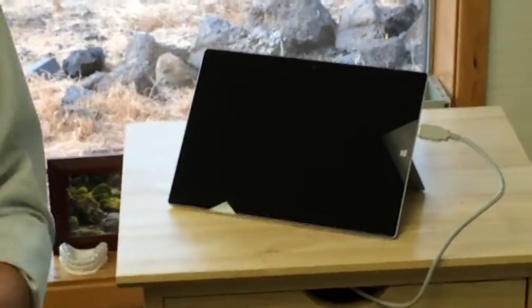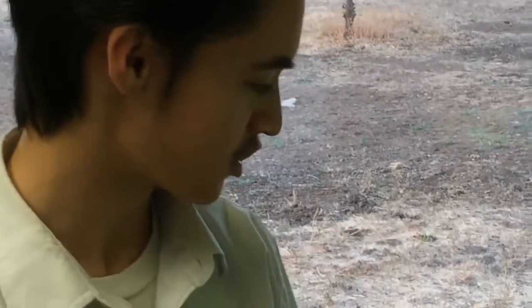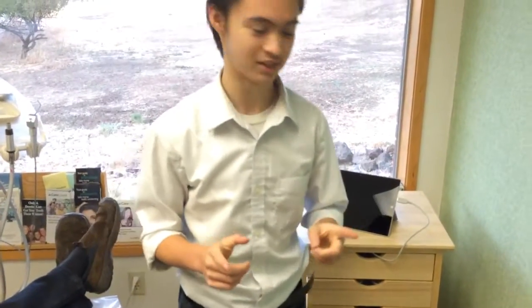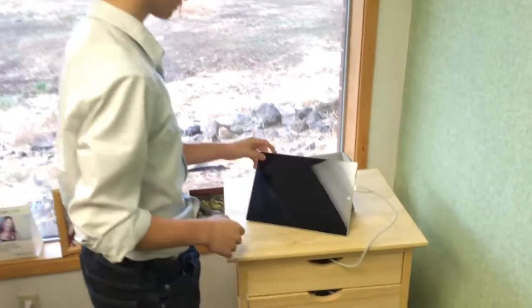This is your training video for implementing this intraoral camera along with the Microsoft Surface tablet. Just watch along. This should make things pretty easy for you. I'll show you all the ins and outs: how you log in, how you take the pictures, how you log into the camera itself, the buttons you push on the camera to take the pictures, how you charge the tablet at the end of the day, all that kind of stuff. Then the doctor's going to have some information for you as well. That way anybody in this office can do it. So here we go. Let's just get started.